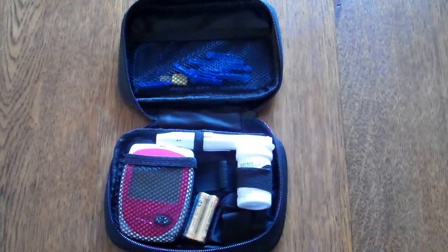In this video we're going to demonstrate the EasyLife haemoglobin meter, or anemia meter. This is a test you can buy that gives you the ability to test your haemoglobin levels at home as an indicator of whether you're suffering from anemia or not.